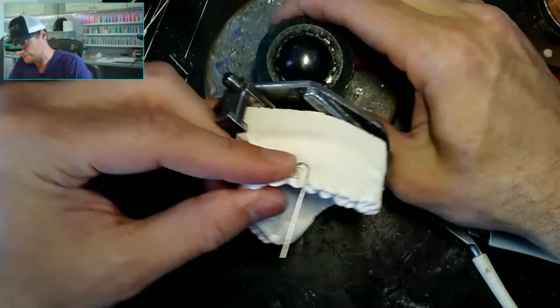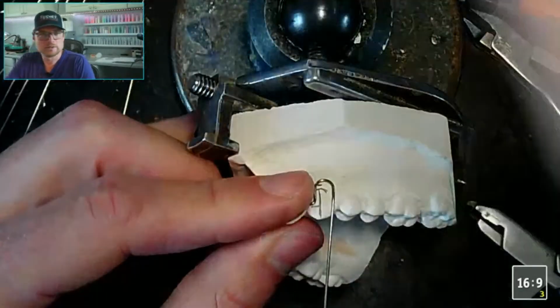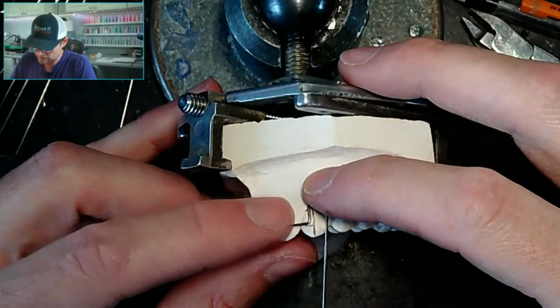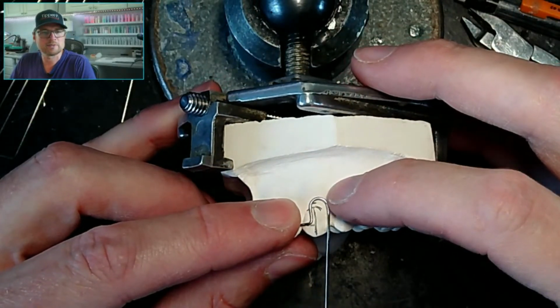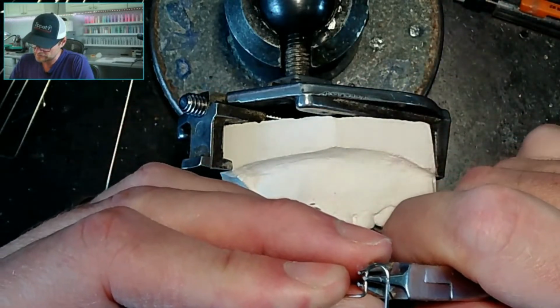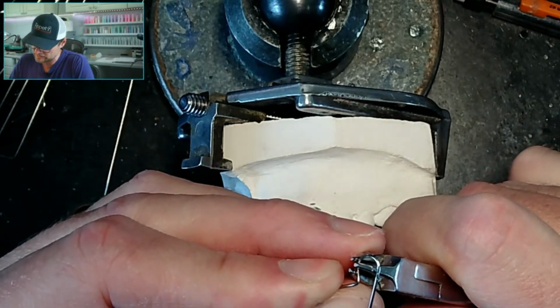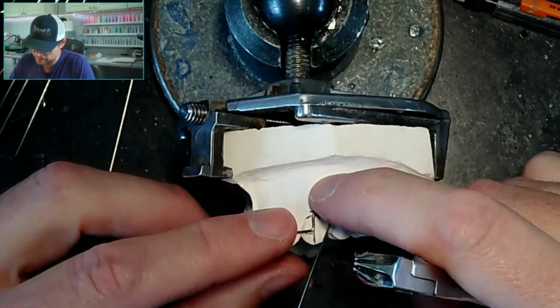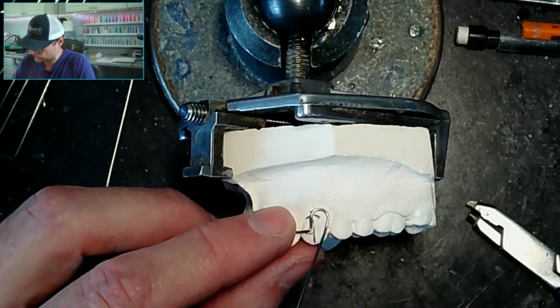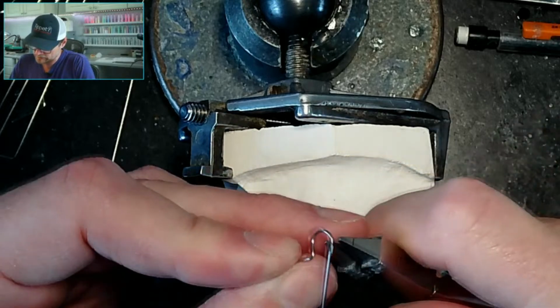Now you got me all worried. Let's zoom in here. So I've got this, my loop is a little tall. You can see my mark. So I'm going to lower this down. So yeah, the CDT is required to be on staff 30 hours a week.